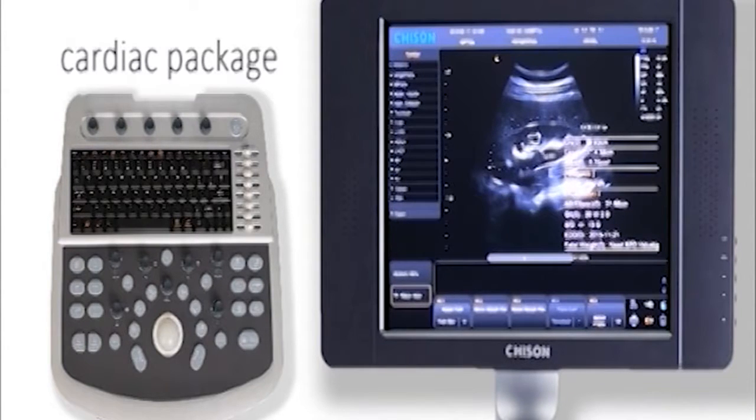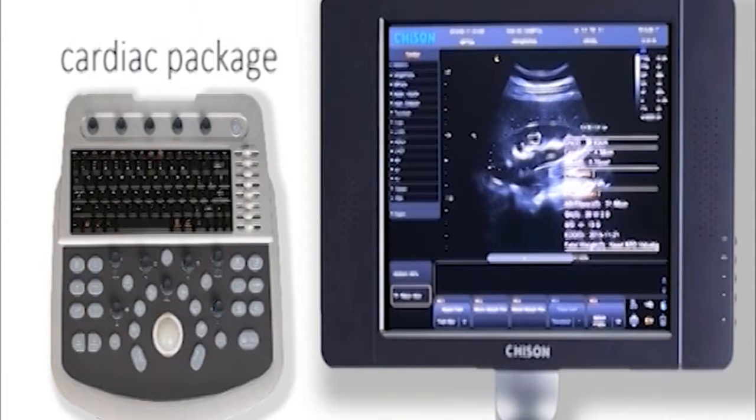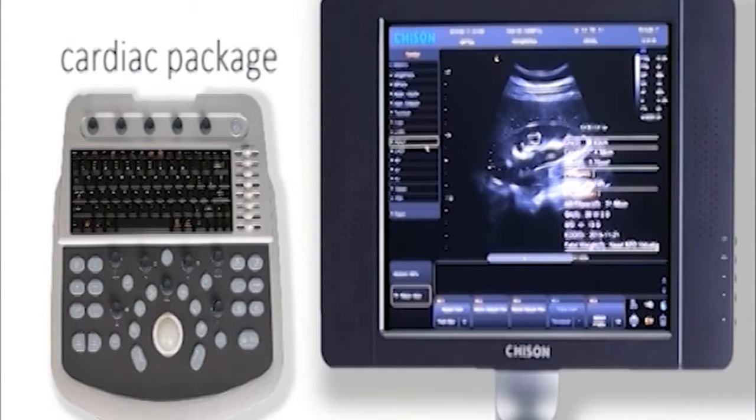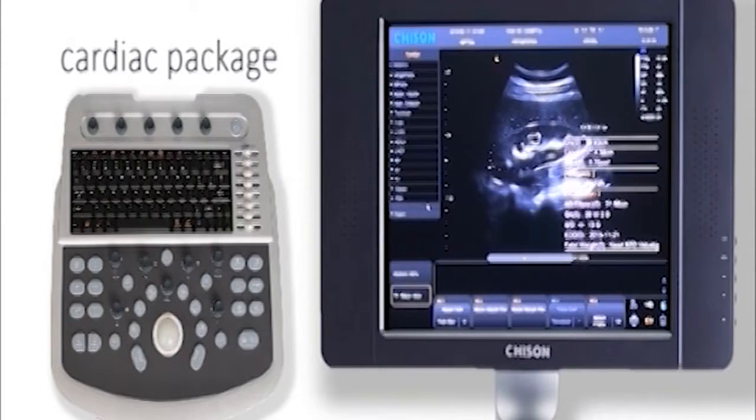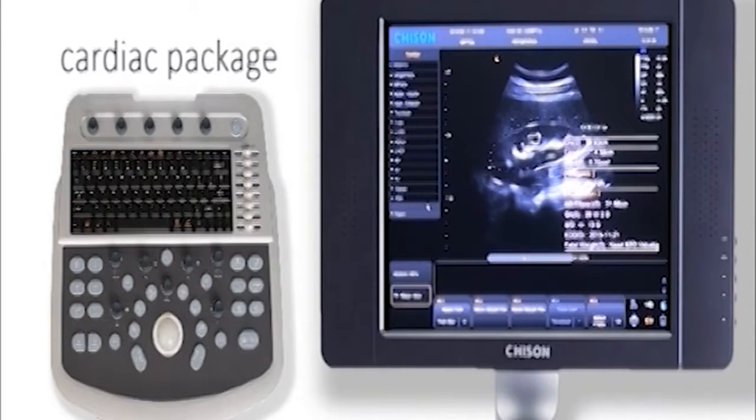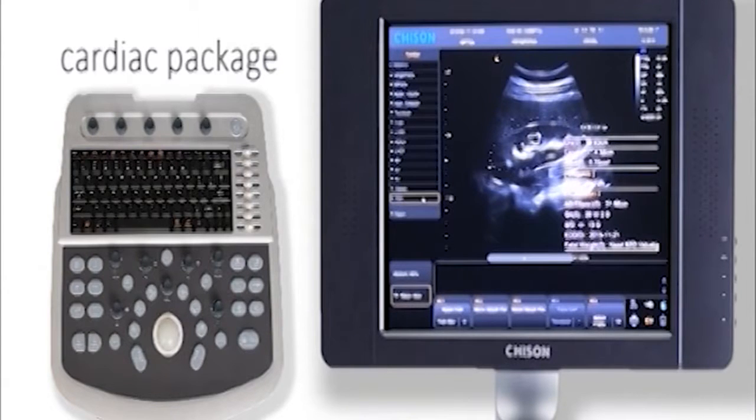Let's go to cardiac package. It offers you complete and professional methods in cardiovascular field: single plane ellipse, biplane ellipse, modified Simpson, bullet, cube. Choose anyone as you want. It will show you professional clinical diagnostic results like EDV, ESV, SV, etc.